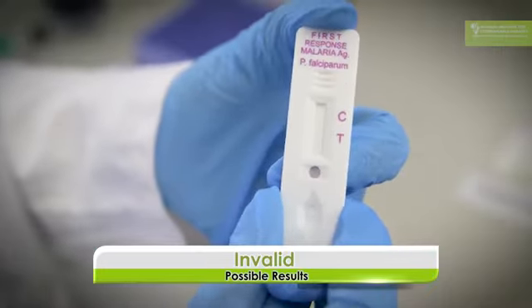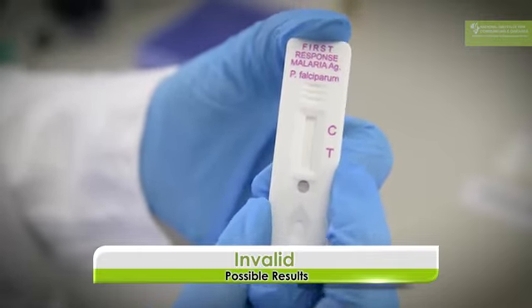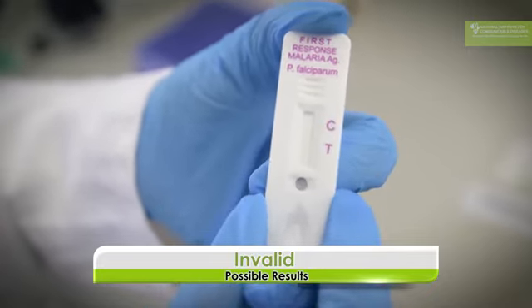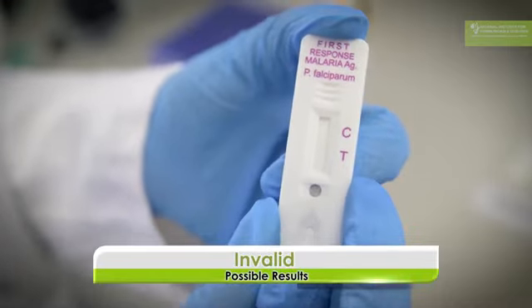This is another example of an invalid test because neither the control line nor the test line has come up, and you can only call a test if a control line has come up. Neither the test nor control line have come up. You have to call this invalid and you have to repeat the test. So you have to start the whole process again with a new rapid diagnostic test and wait till you get a result, because you cannot send a patient off without a result, whether it is positive or negative.